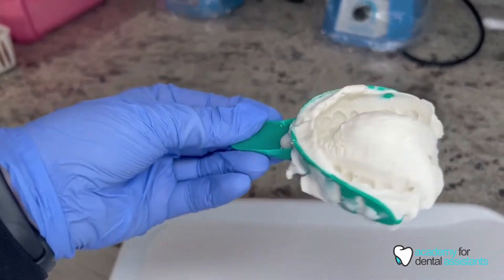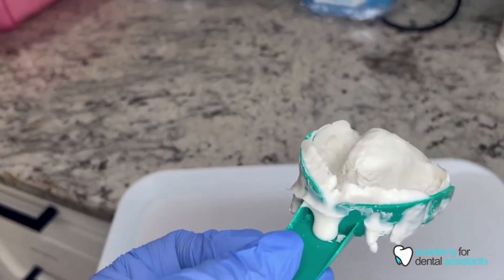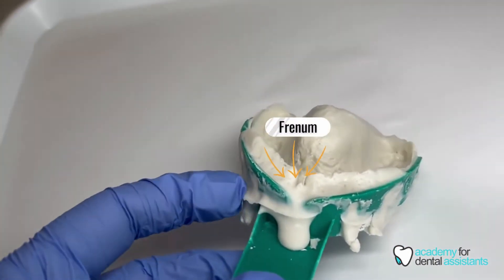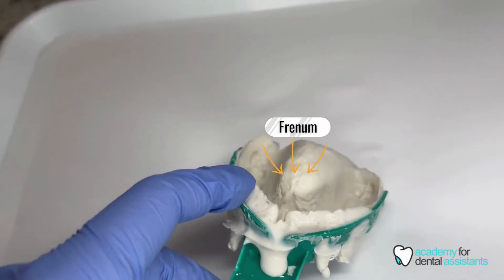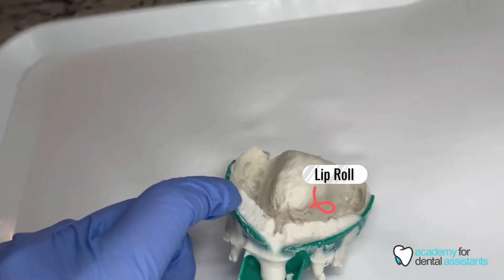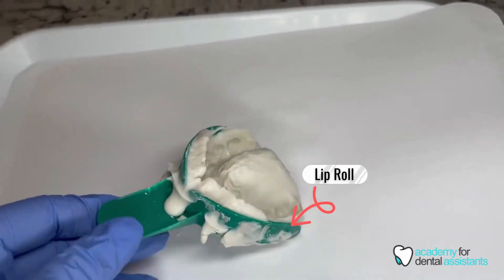Another important thing is that you do have a good impression of the frenum and a good lip roll. As you can see here, this is where the frenum is, and this is the patient's lip roll.